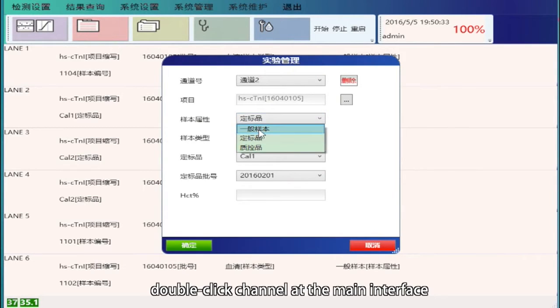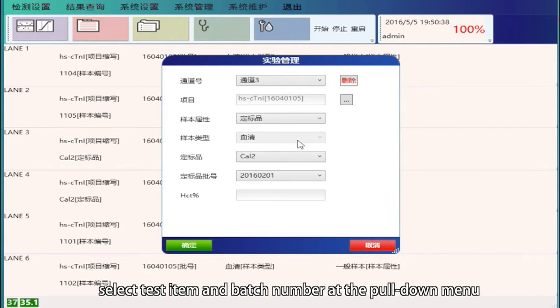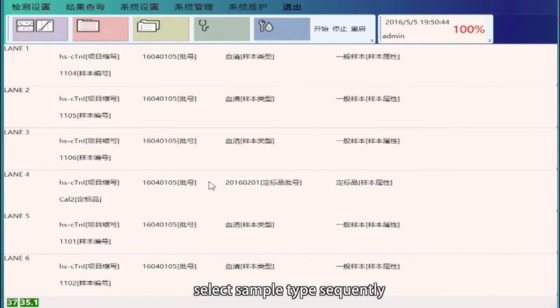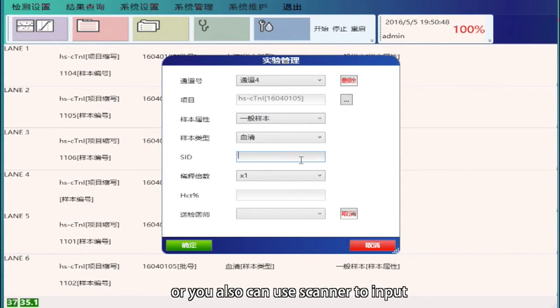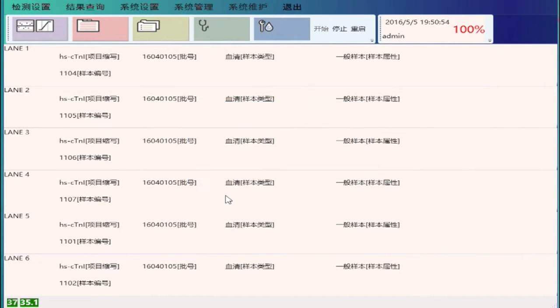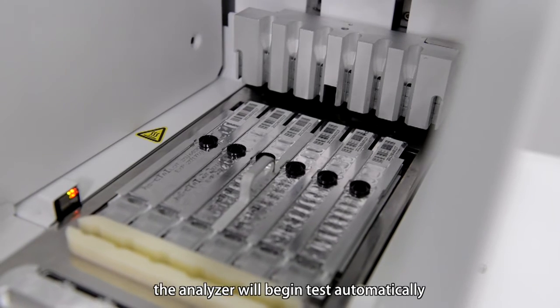Close the cabin. Double-click the channel at the main interface. Click Select Item button, select the test item and batch number from the pull-down menu, and input the channel information. Select the sample type sequentially and input the sample ID — you can also use the scanner to input. When finished, click Start. The analyzer will begin the test automatically.